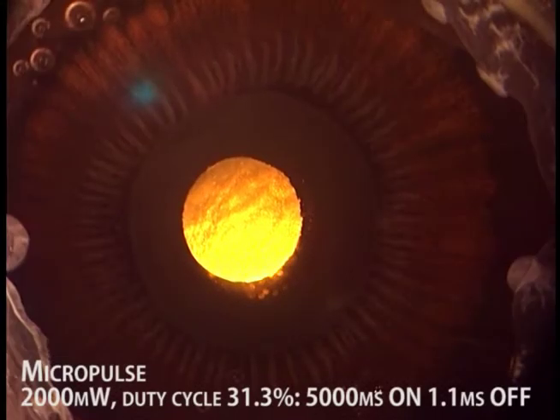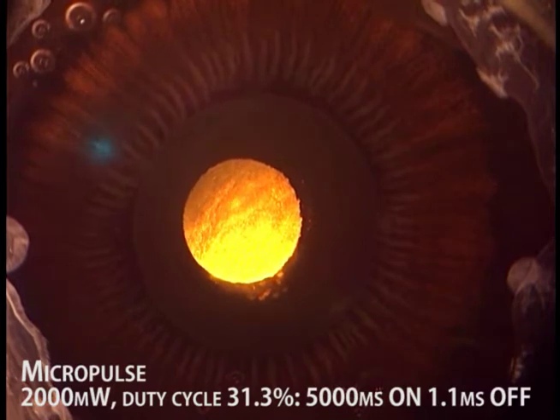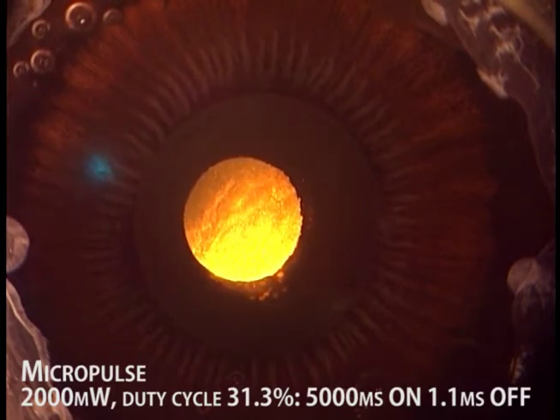This is a Miyake-Apple View of micropulse laser. Note there is no shrinkage of the ciliary processes.